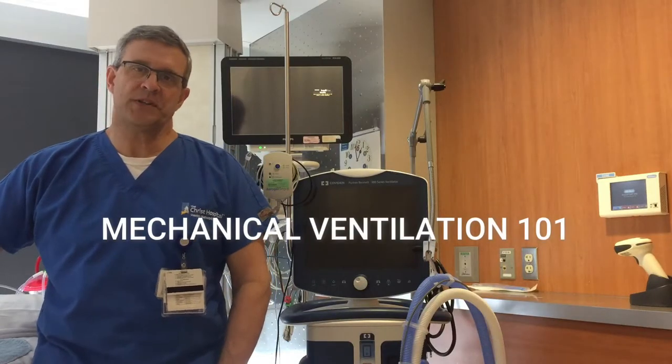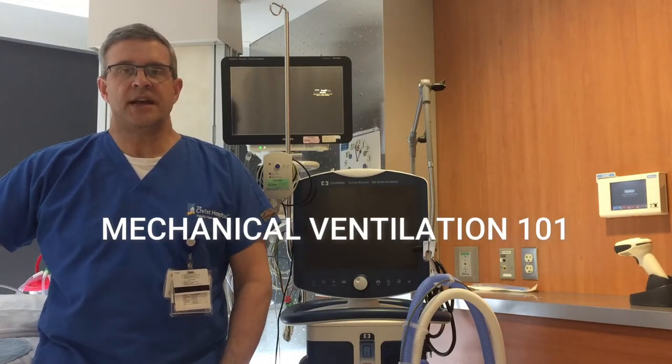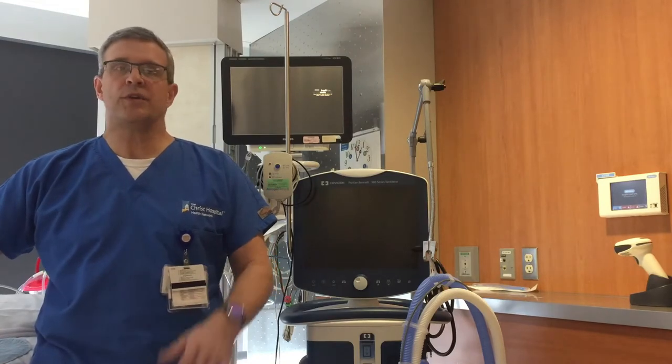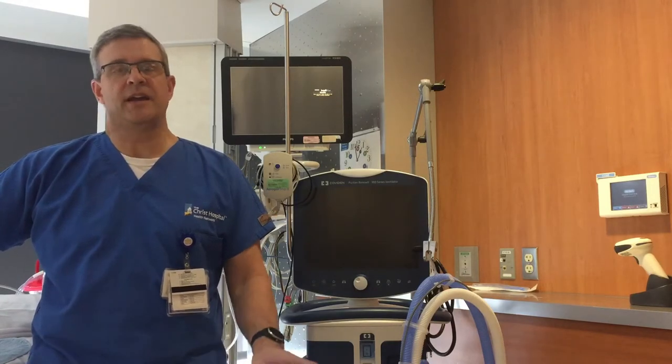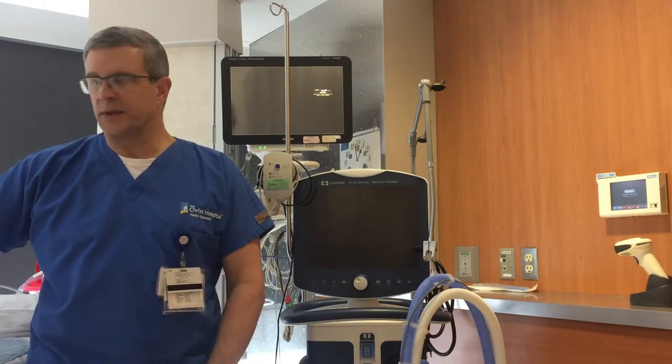Hi, my name is Mike Chaney, and I'm a respiratory therapist. Today I'm in the ICU with a ventilator, and we're going to talk about a broad overview of mechanical ventilation — nothing fancy, just an intro for those of you who are just beginning and want some general information about ventilators and how we use them.